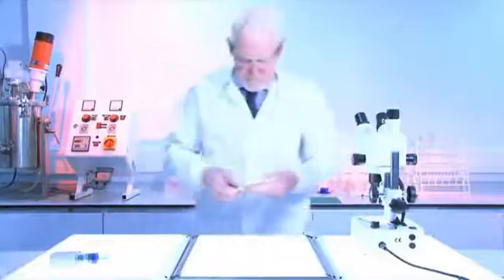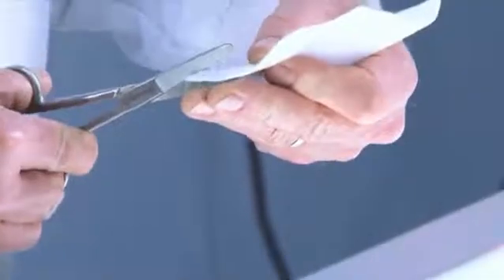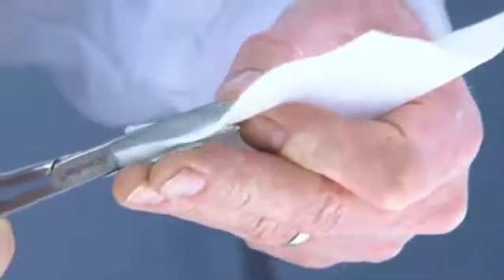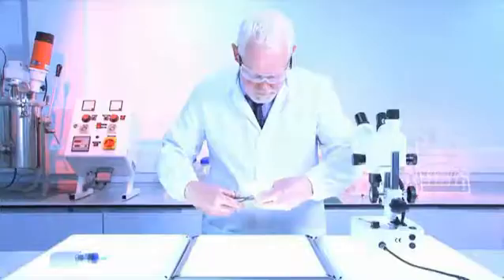We cut strips from two dressings: firstly, Aquacel with Hydrofibre Technology, second, the alginate dressing Sorbsan.